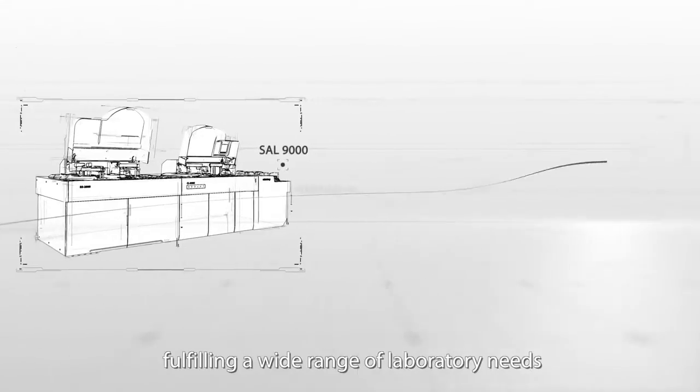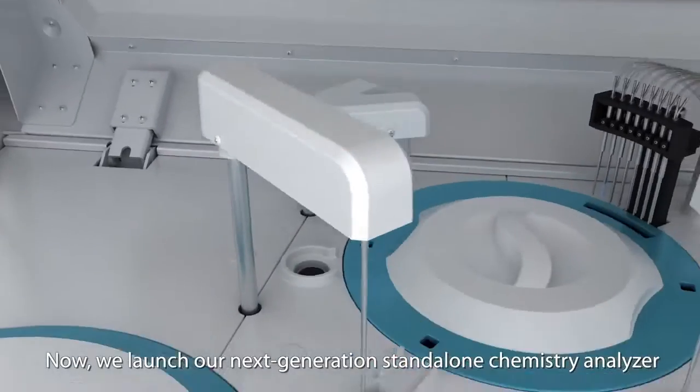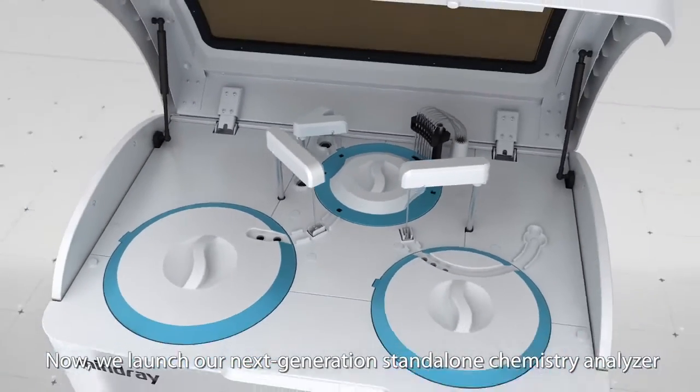Original manufacturer reagents, calibrators, and controls, fulfilling a wide range of laboratory needs. Now, we launch our next generation stand-alone chemistry analyzer.